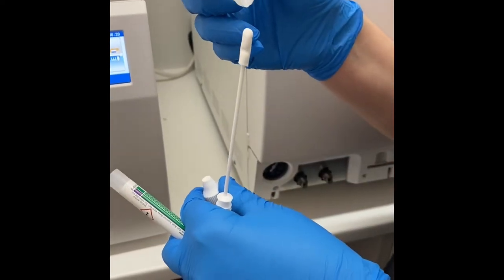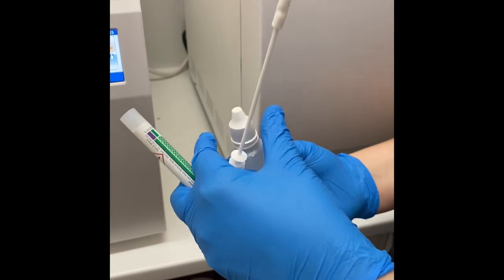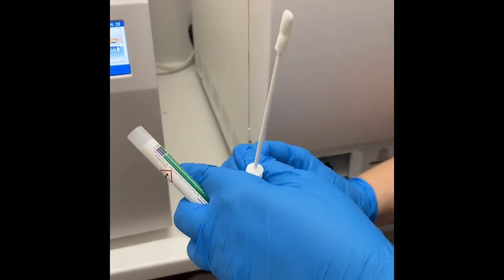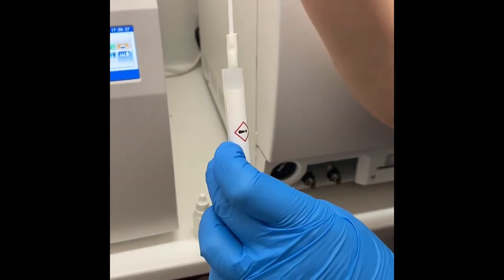Make sure you don't touch the swab against any other item, as this may contaminate the swab. Place the swab just gently back in the tube for the moment.